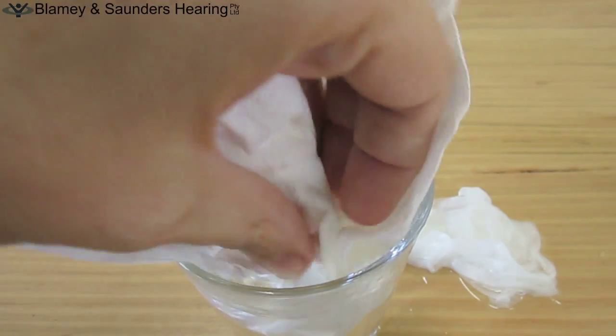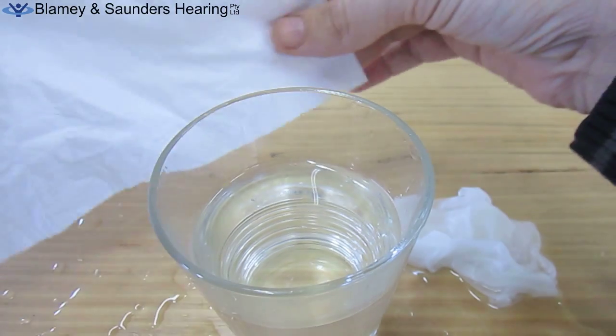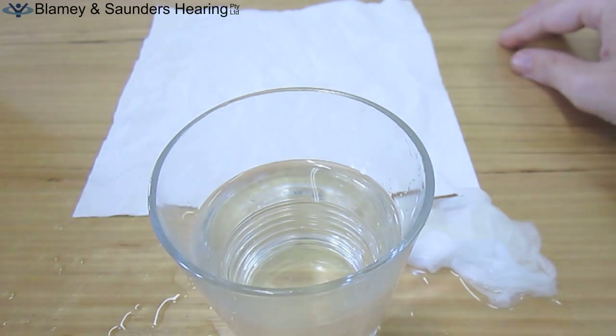We now place the tissue that has been coated with the hydrophobic nano water repellent in the glass of water, and as the video shows, it is unaffected.